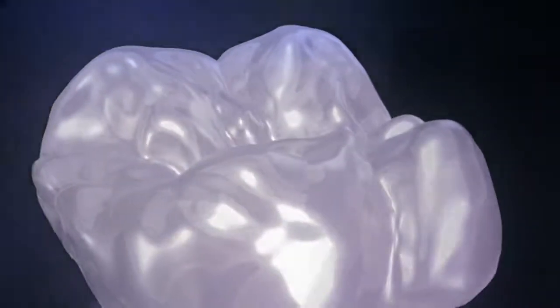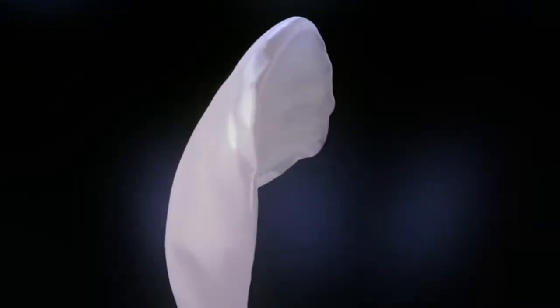The unique manufacturing process combines the best of two worlds: wafer-thin veneer and occlusion shells together with an inorganic surface as hard as dental enamel.